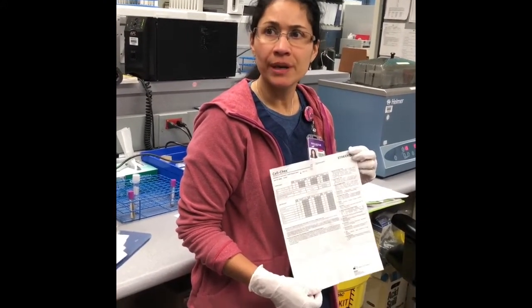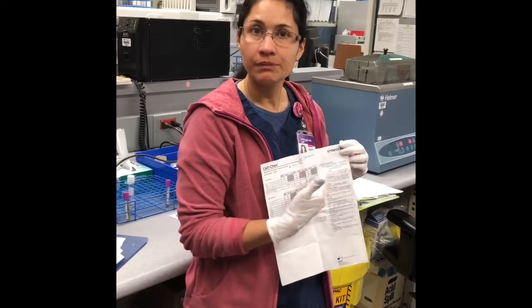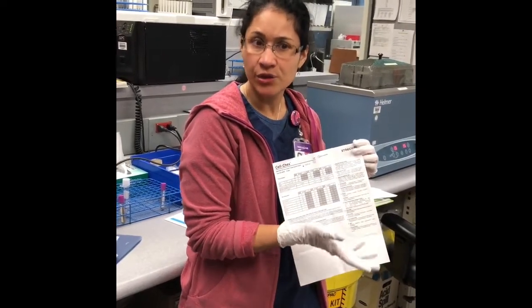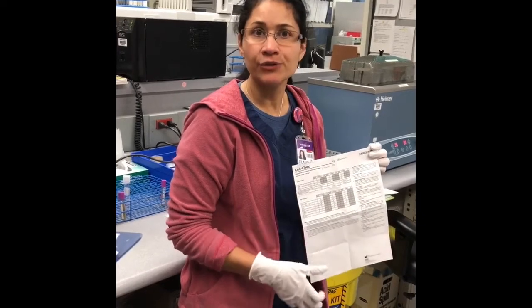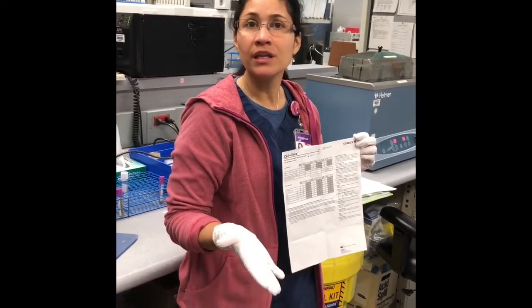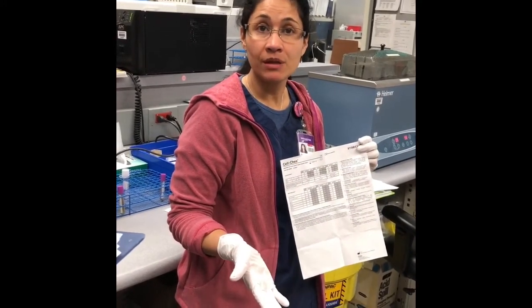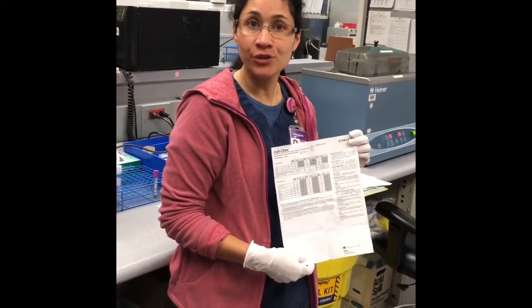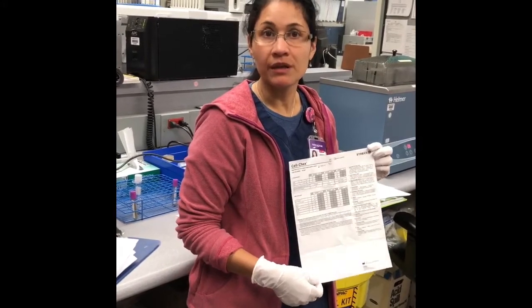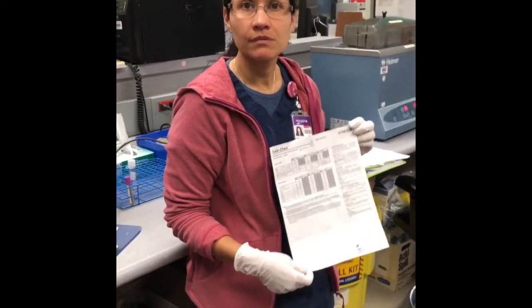You can monitor that part and do maybe a ×5, and that will verify that your dilution is correct according to the ranges in the insert. So that's a good CAP item, that you can prove your dilution is accurate. It's probably a good idea to prove maybe once a month that you're verifying your dilution with a QC material. As well as the dilution fluid that you use, verifying that it's clear.